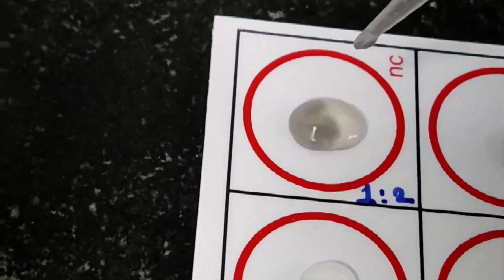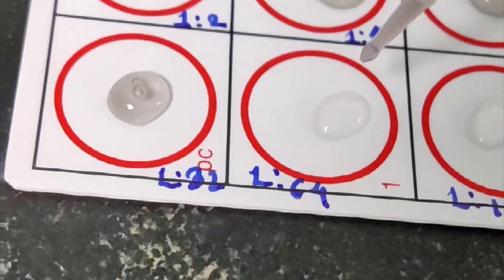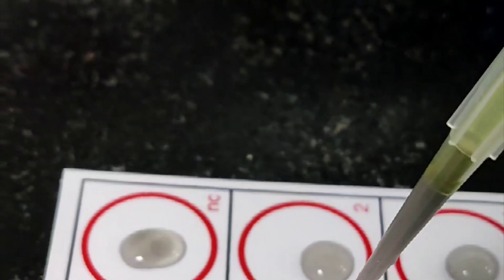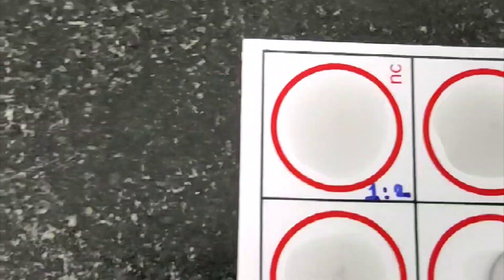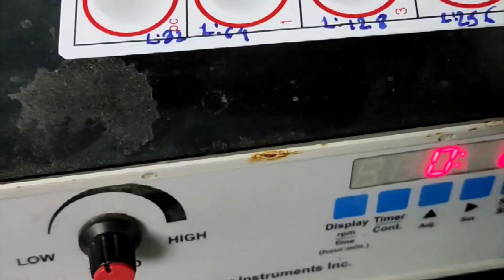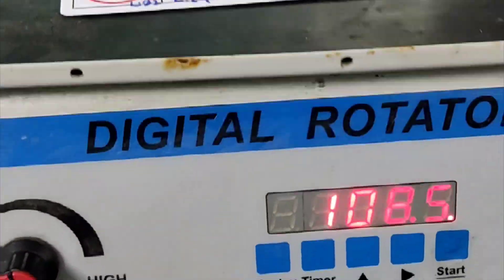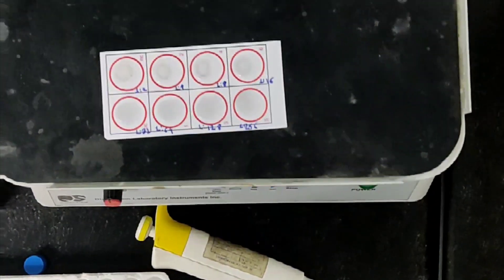Lastly, we will drop the suspension of carbon antigen to each dilution. We will mix the suspension appropriately and rotate on a rotator for about 8 minutes. After 8 minutes, we will interpret the results by observing the flocculation macroscopically.